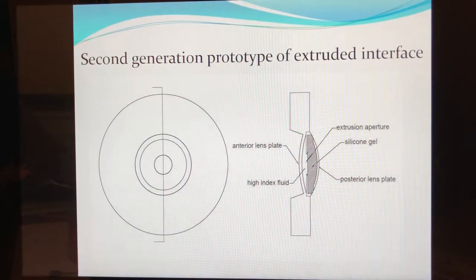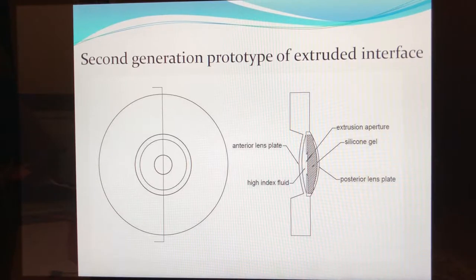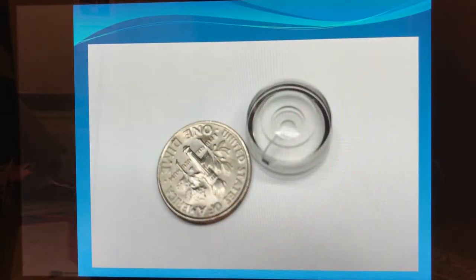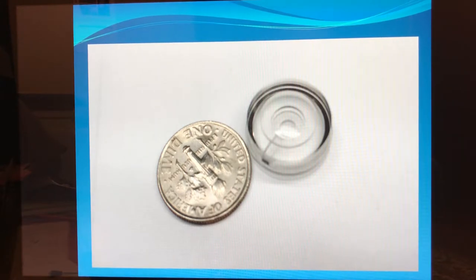We developed a best guess prototype based upon our first-order design. We desire to focus on the retina, three diopters of accommodation, an actuation force of less than three grams, and to fit within the physical constraints of the eye. The actual lens prototype shows the outer lens shell and the inner extrusion aperture of three millimeters, which you can see centrally.